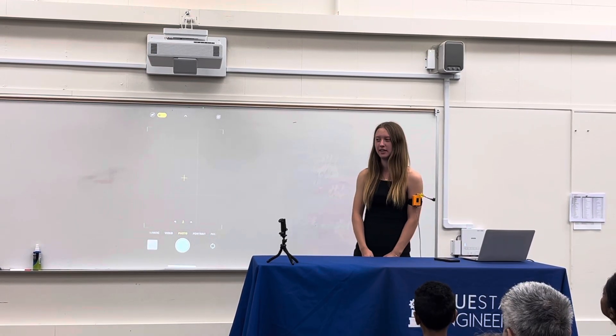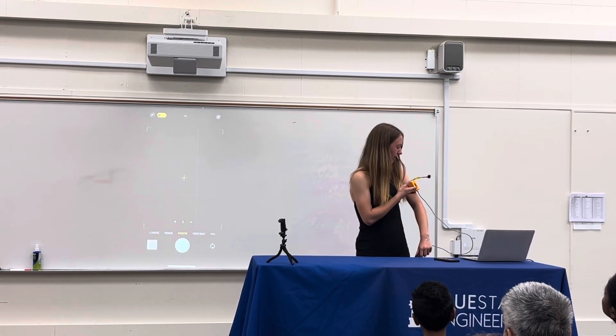My name is Sophia, and I go to Mountain View High School, and I made a fitness rehab device.